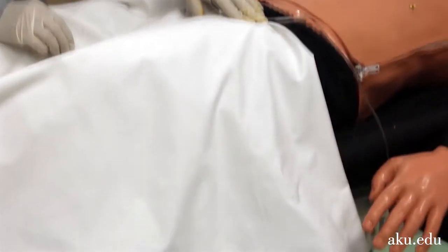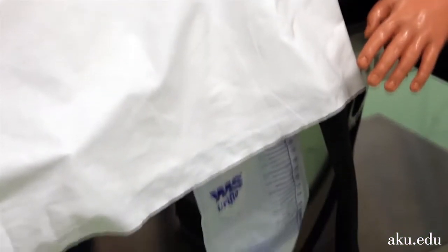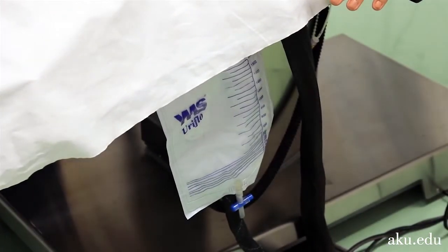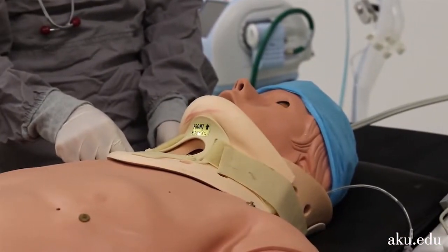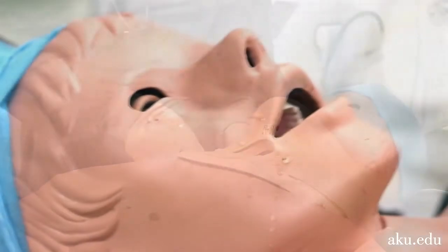It has interchangeable genitals with real-time urine output and allows urinary catheterization. It has different fluid secretion effects, such as tearing, sweating, and frothing.